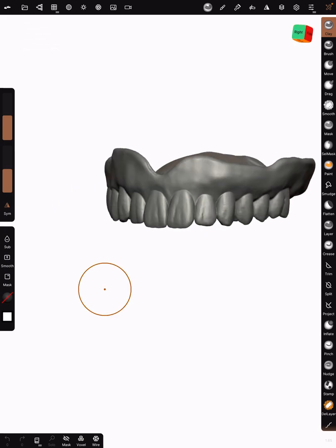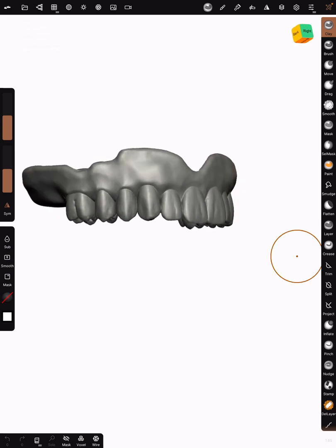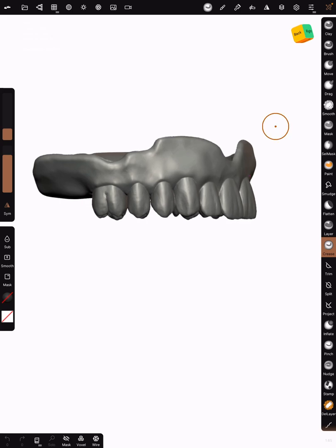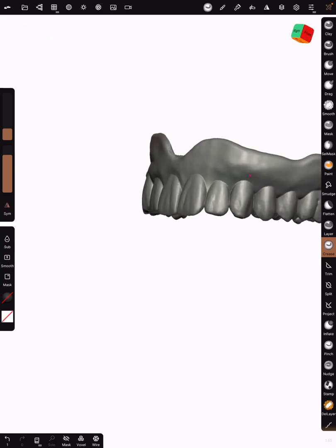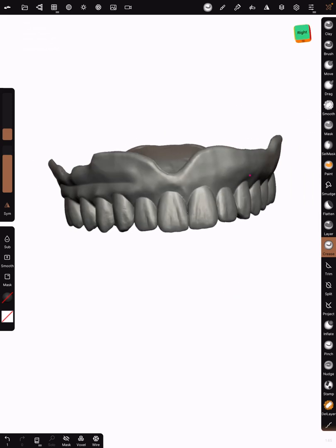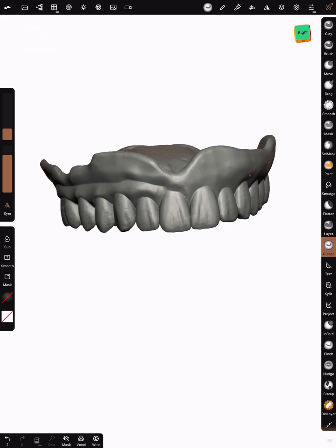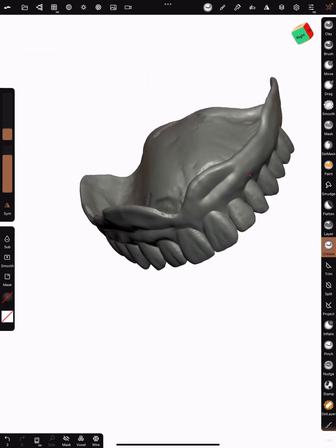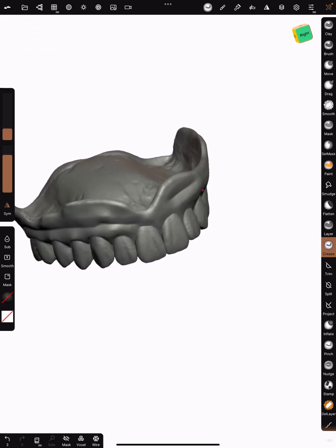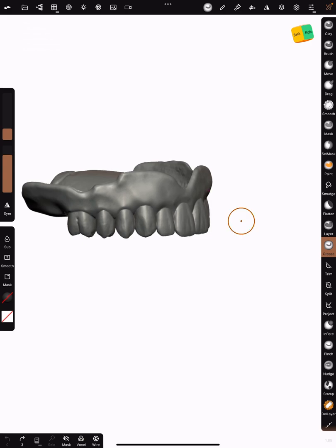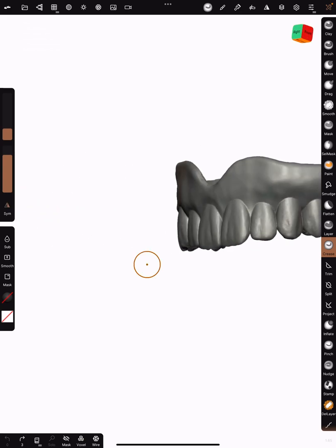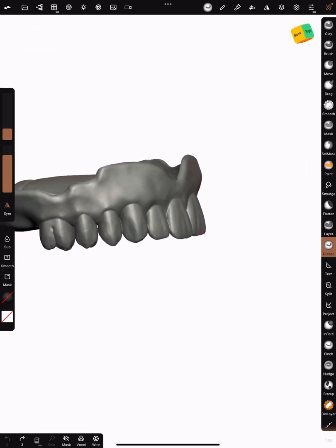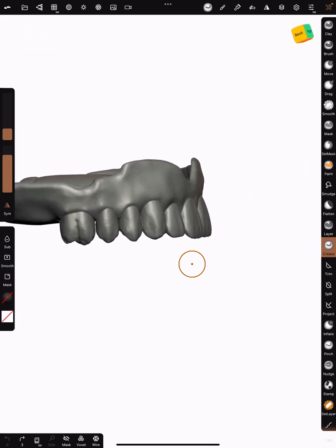Once you've done that, you should be ready to go. The first thing that we're going to do is create some gingival contours. For that, you should see the icon crease. Highlight your crease. Now this little parallel triangles here, you want to turn off that symmetrical icon because if you leave it on, what you do on this side will be happening somewhere else.